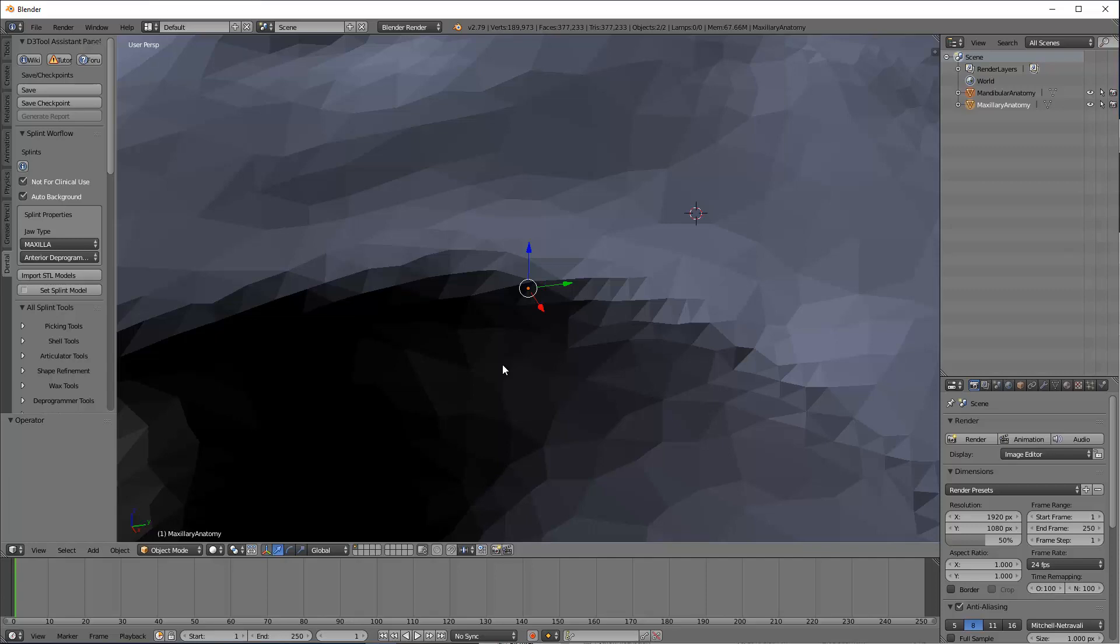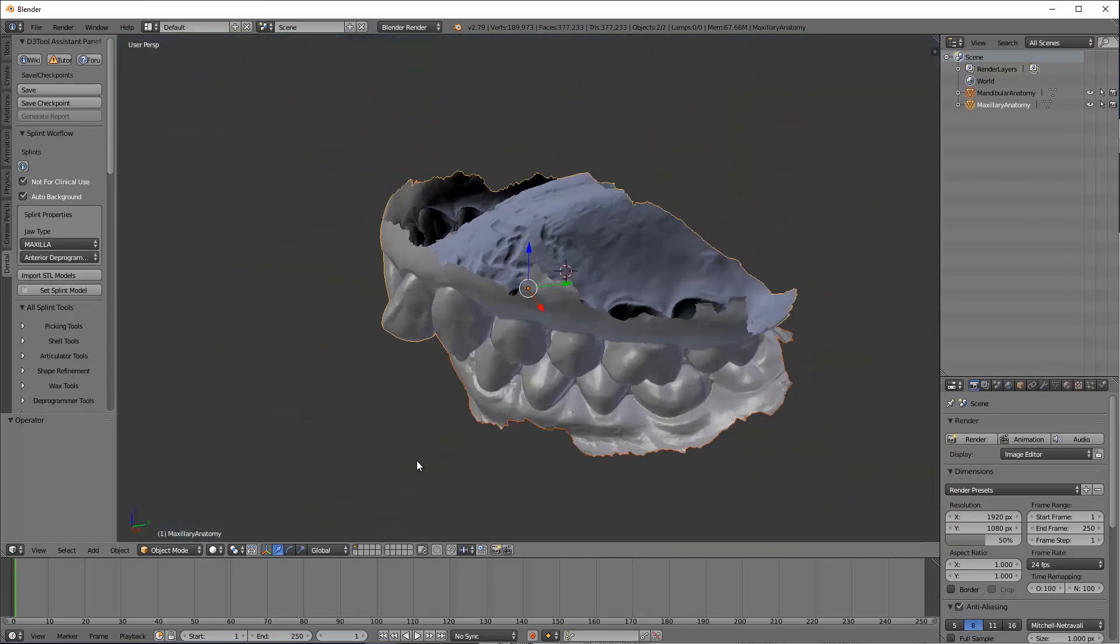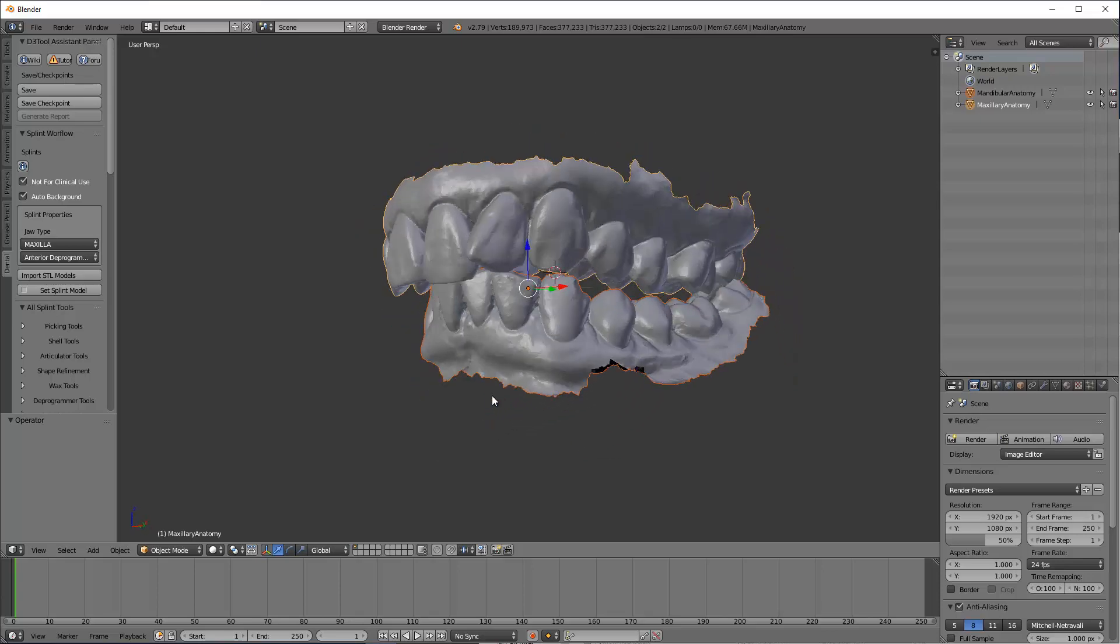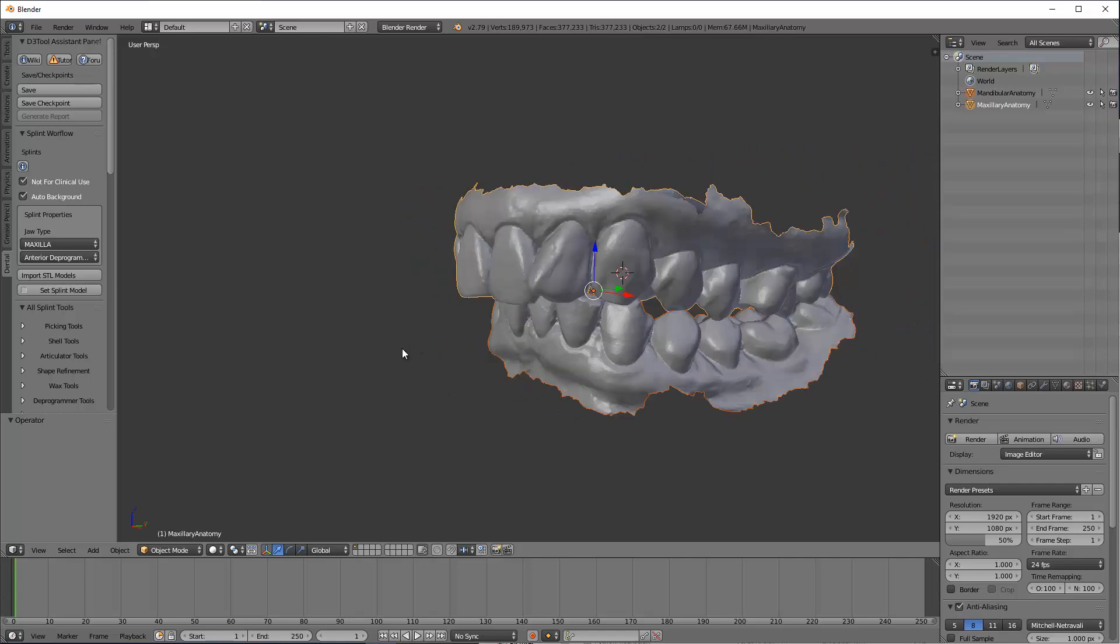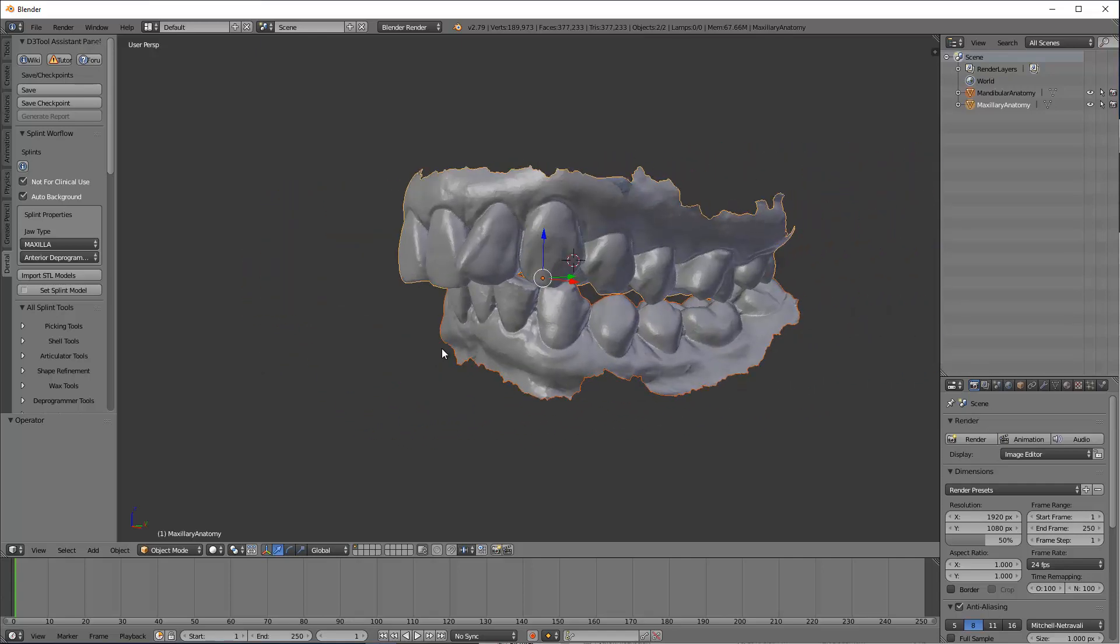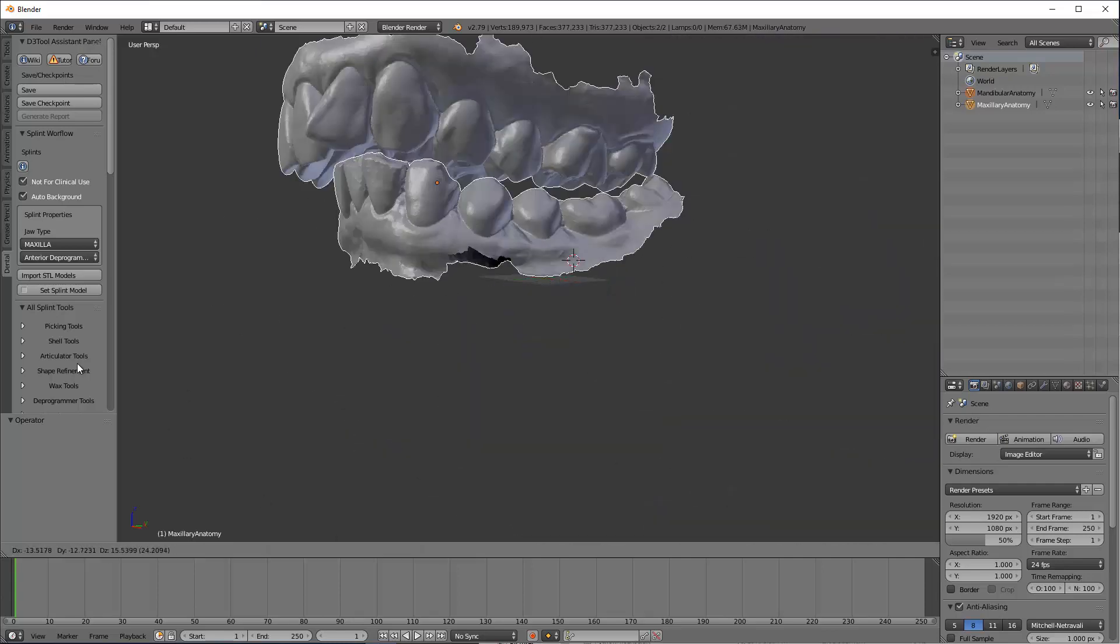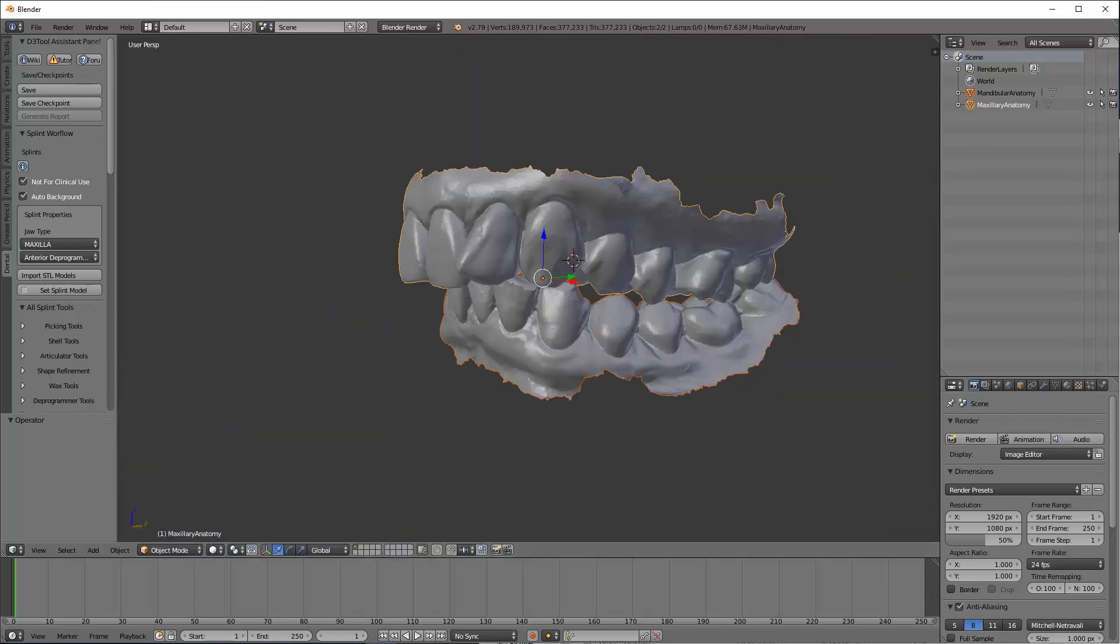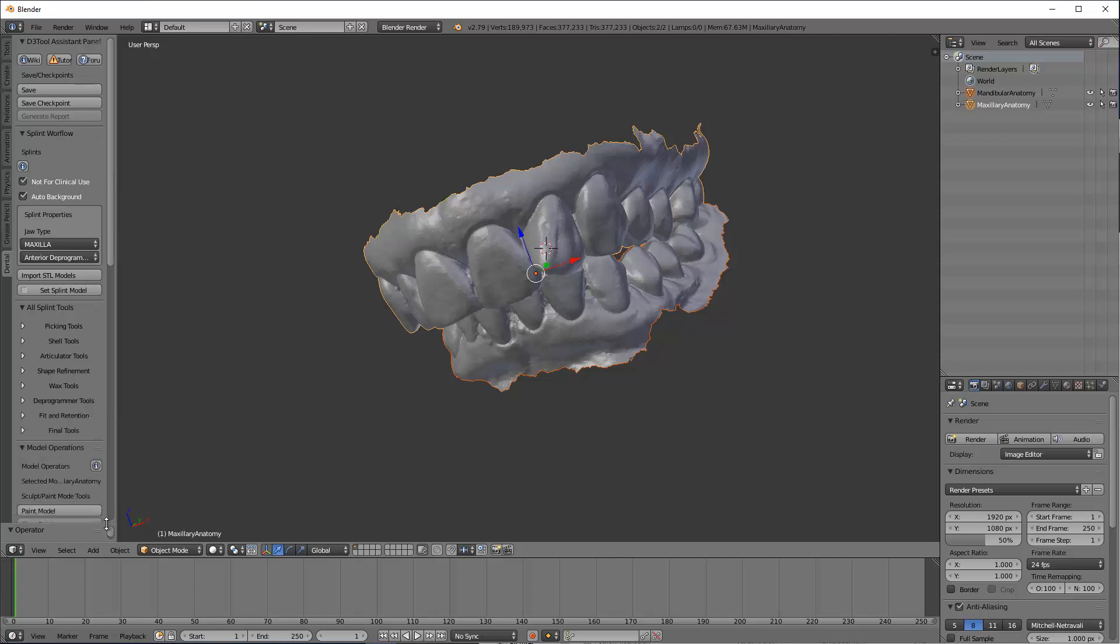Now, when it first opens up, it tends to be zoomed in super far, so I'm going to take the wheel button and I'm going to wheel it way back. And if I click the wheel button, I can rotate things around. If I need to slide things around, I hold the shift button and use that same wheel button. If you accidentally right click and you end up winding around, just hit escape. So I'm going to follow through this protocol or this panel on the left, which is basically going to tell me what to do at all times.